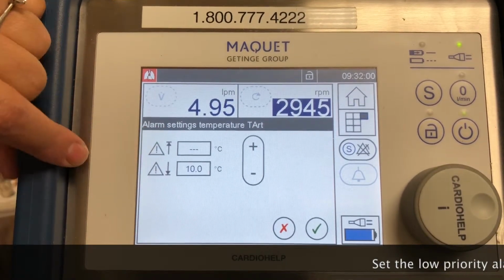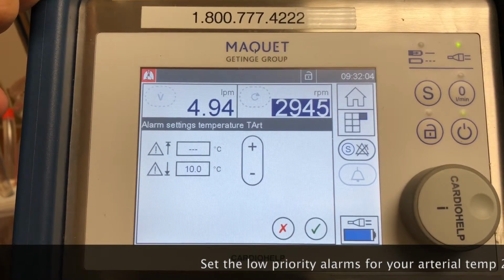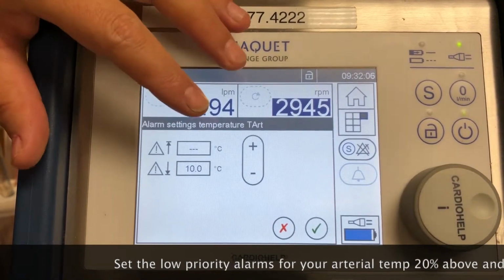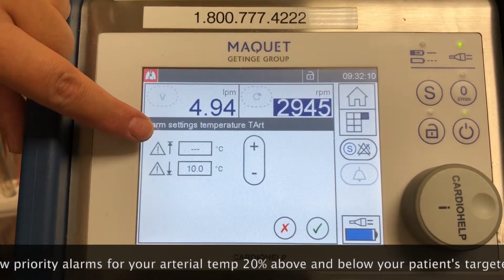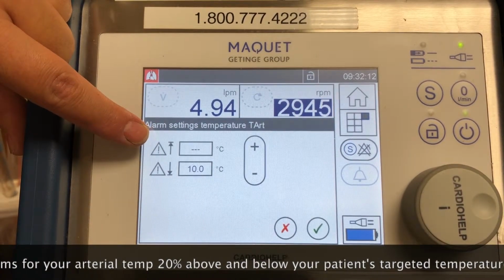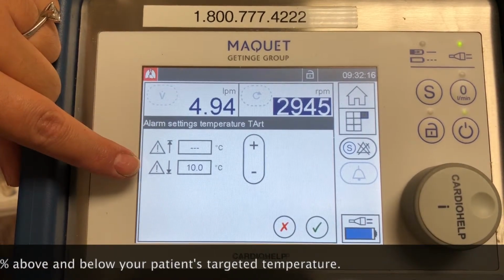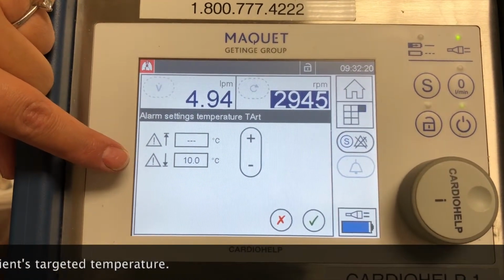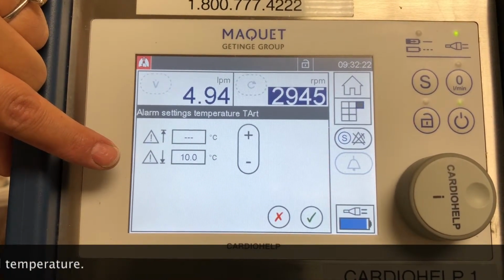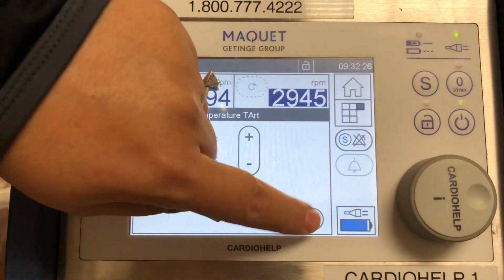Some of our heater coolers are designed so that when you turn it on, it goes automatically to 42 degrees. This is where it's important for you to make sure you put it tight. So you want to set your higher limit at least at 37, so it alarms at you if you heat up the patient. And your lower limit could be 36, because at that point you know that maybe the heater cooler has turned off without you noticing it, and you want this machine to tell you that you're cooling the patient a little too much.